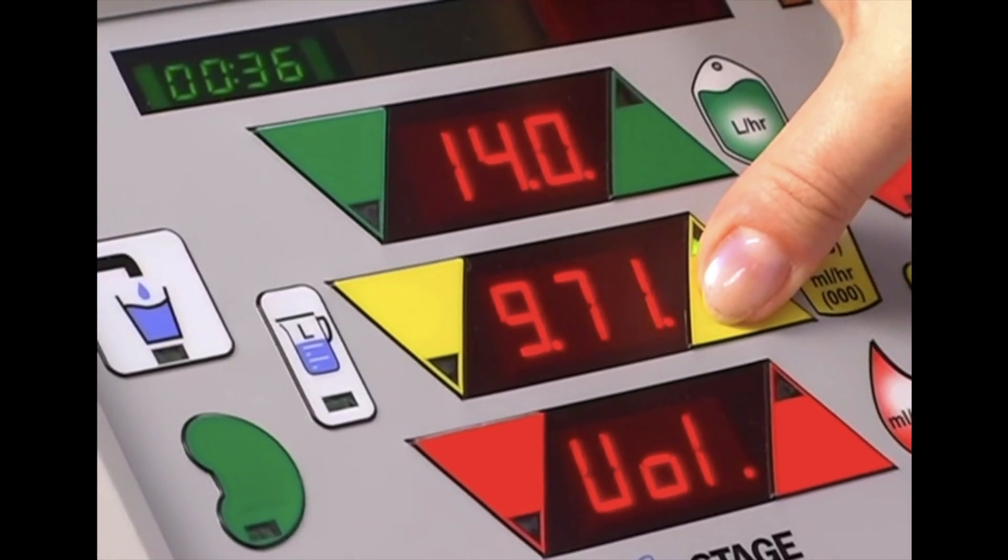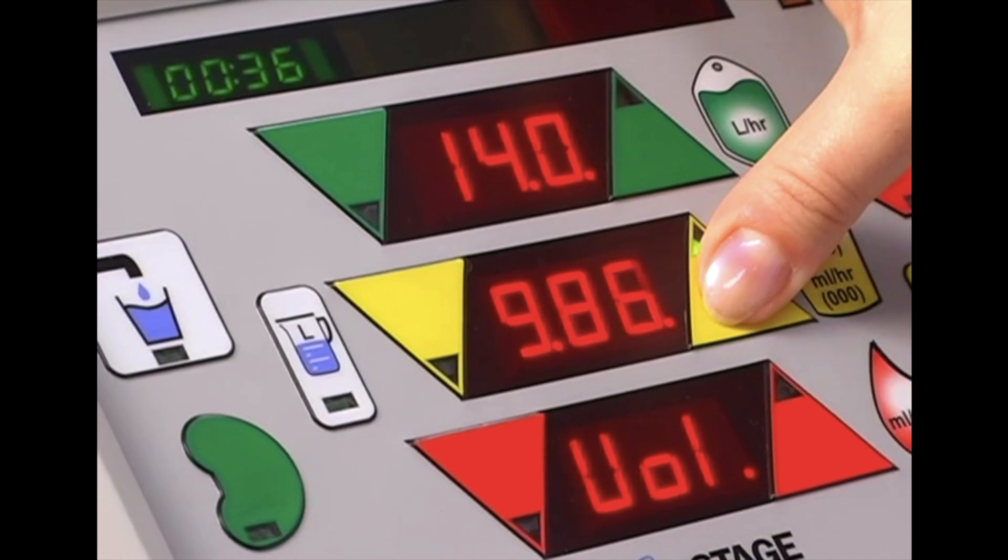While in the volume screen, increase the number in the yellow window to 9.99.